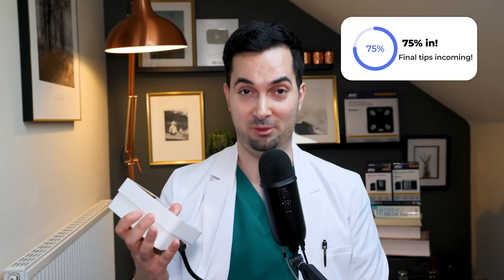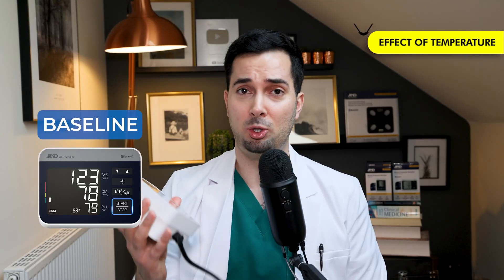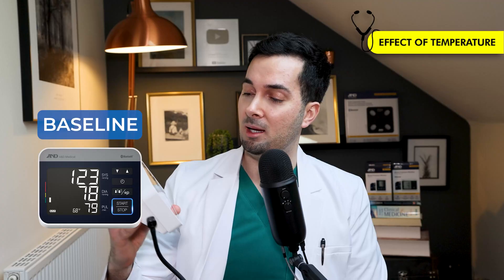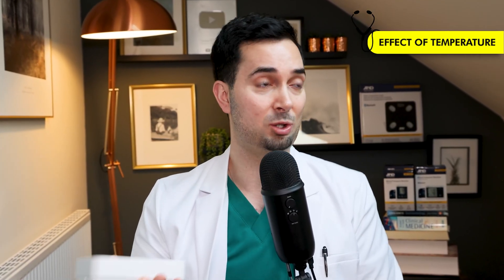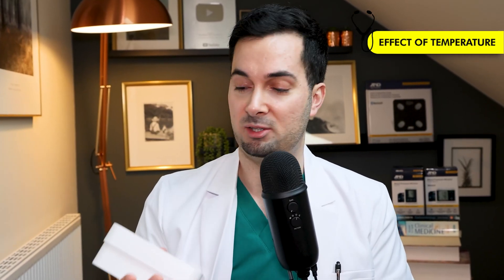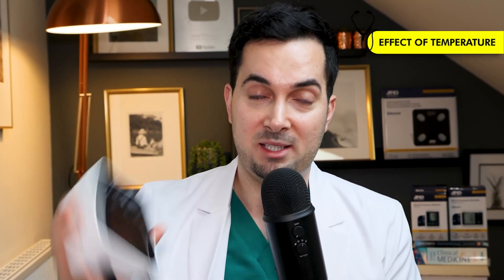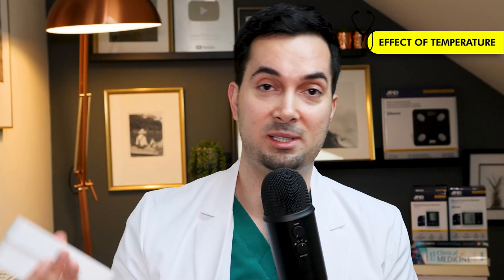Results are in — this one was really interesting. Baseline was 123/78. I was outside for about 10–15 minutes on a clear but very cold day. I did rest about five minutes before taking the reading. My blood pressure was 139 over 70 — 139/70. So temperature matters: coming from a cold environment into a warmer one without time to adjust can make a difference, and a colder room where you're taking blood pressure can also have an effect. The A&D medical Precision Check Pro also records room temperature, so you can correlate abnormally raised readings with temperature.